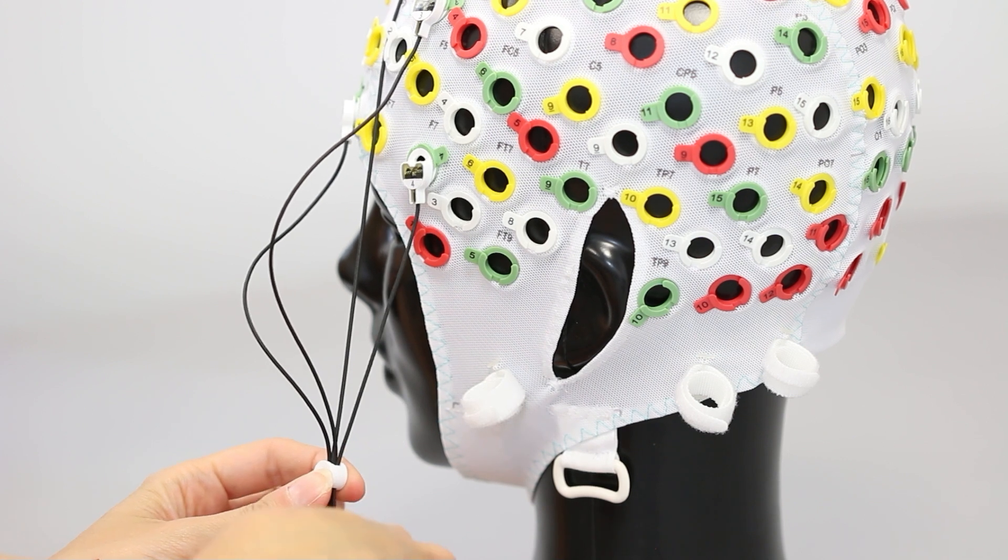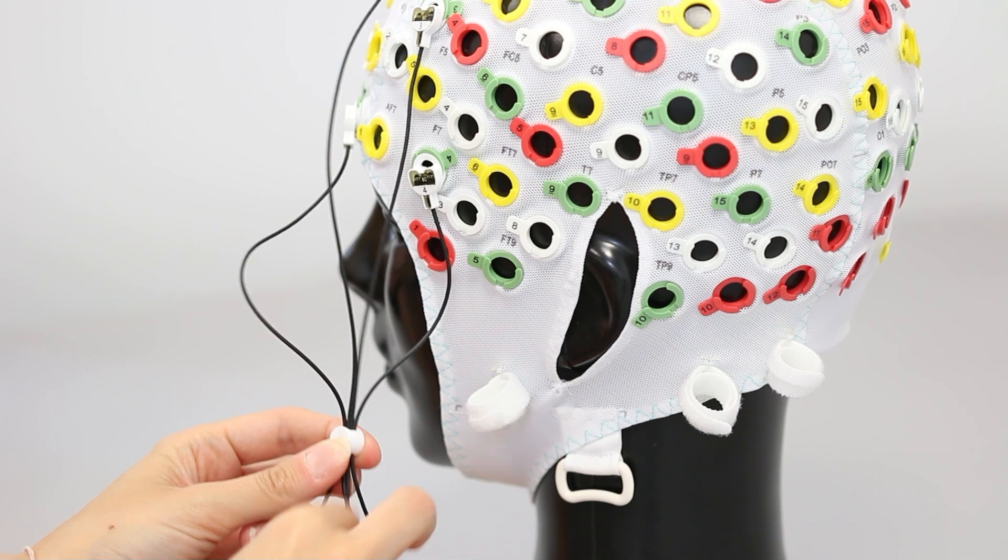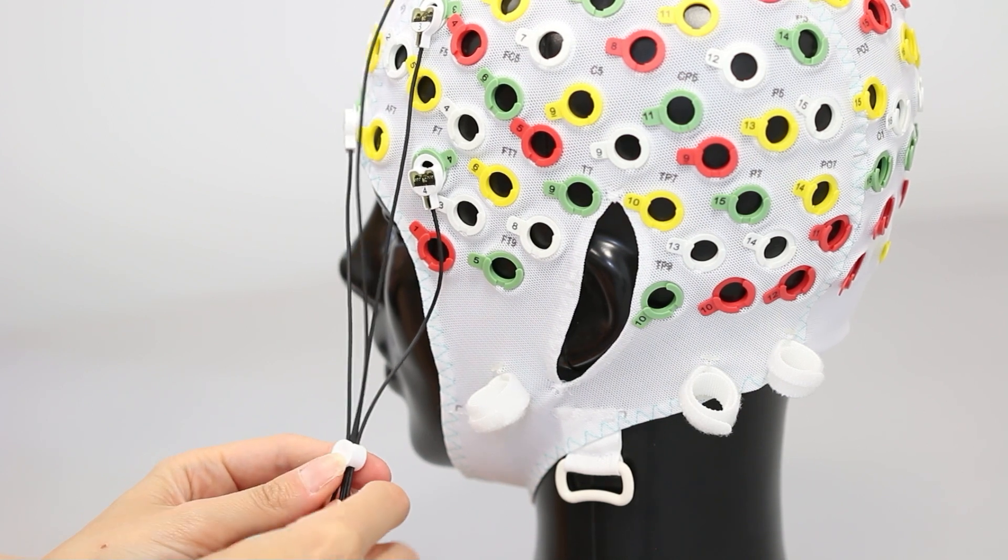Avoid pulling the cable too much as well, as this will cause the electrodes and holders to go too far away from the scalp and discomfort to the participant.